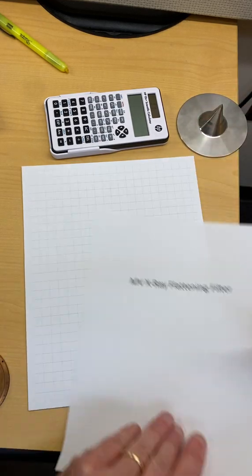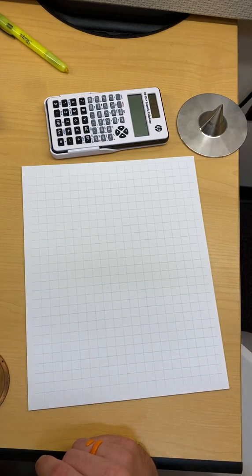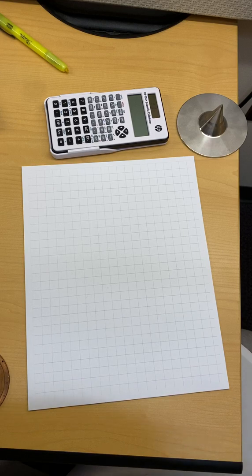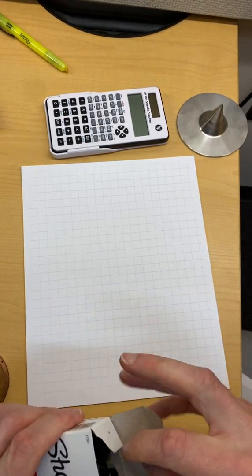And then by design, the X-ray flattening filters are taking what is an unflat X-ray beam and turning it into a flattened X-ray beam. I lost my pen. I have to get a new pen out.